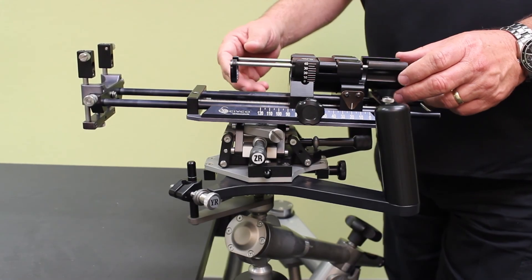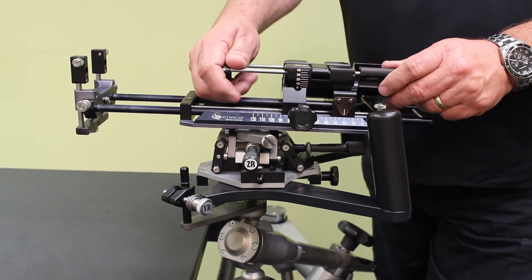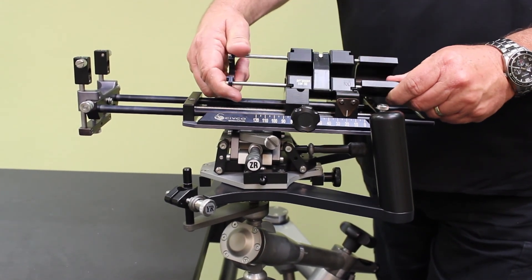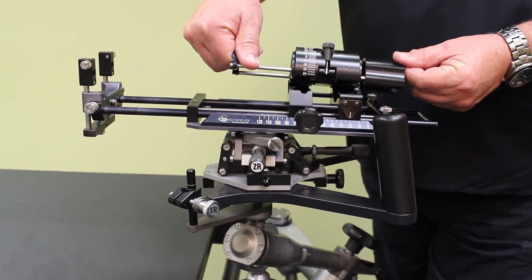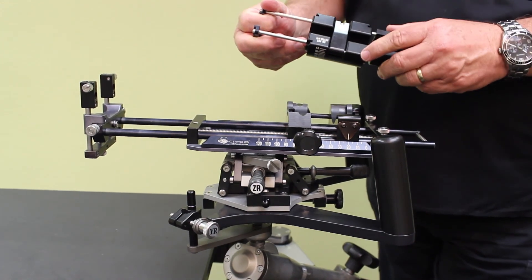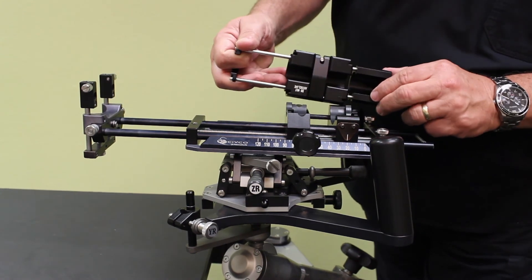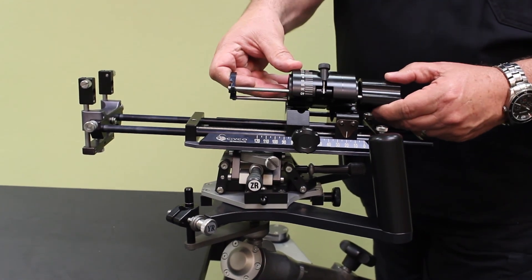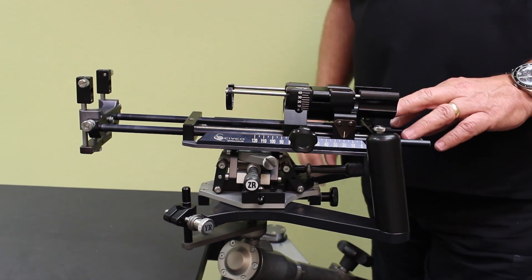You may need to remove your cradle from the classic stepper for reprocessing. To do that, simply roll it like we were before, but this time we're going to continue to roll it until it comes all the way off of the stepper. Then you can clean it. When you're ready to put it back, there are channels or grooves here and some tabs here. We want to turn this almost upside down, line those up, and then it comes right back into place. And now you're ready to reuse it.